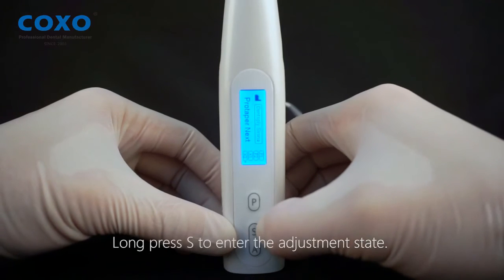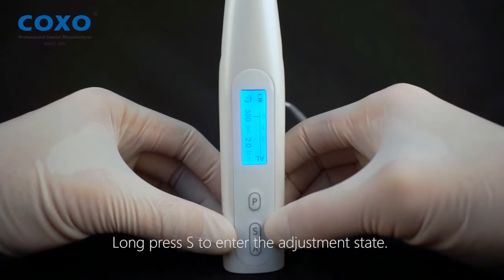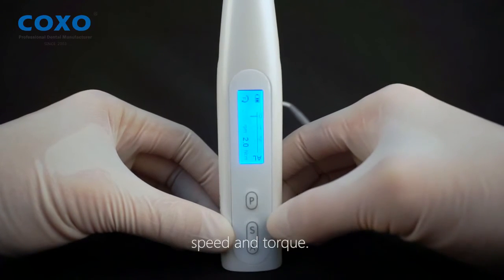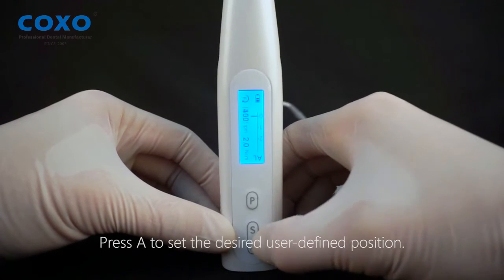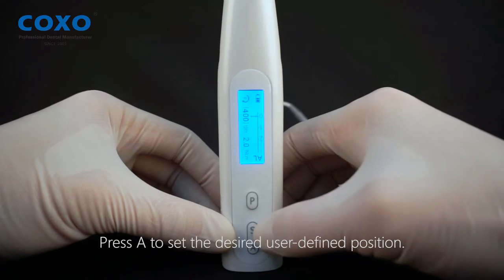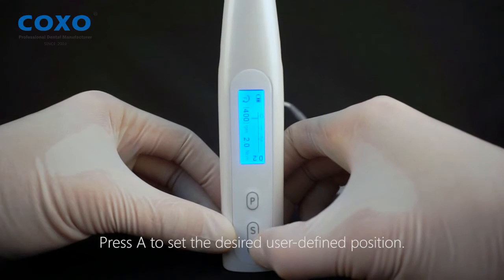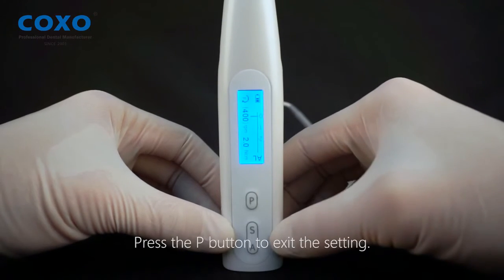Press S to enter the adjustment state. Press S again to select between the user-defined position, speed, and torque settings. Press A to set the desired user-defined position, then press P to exit the setting.